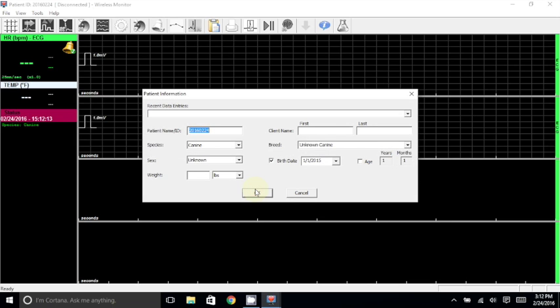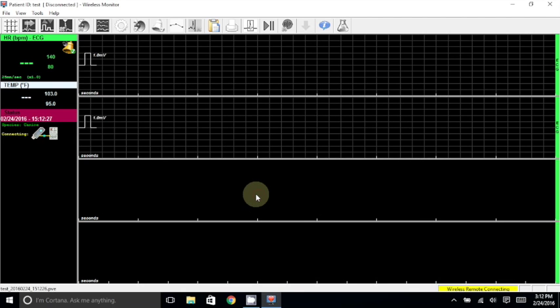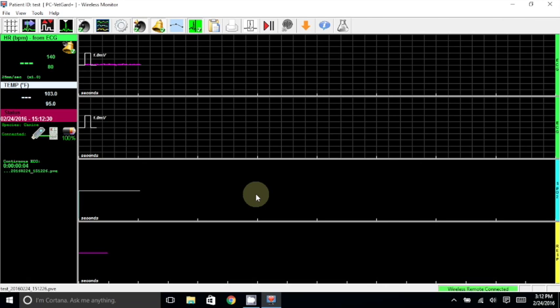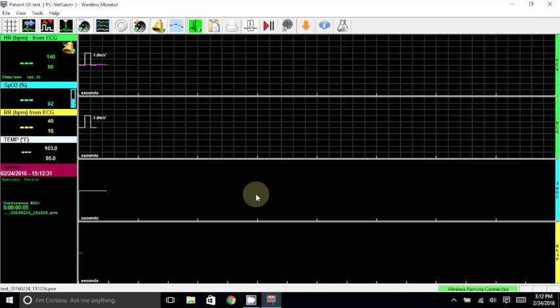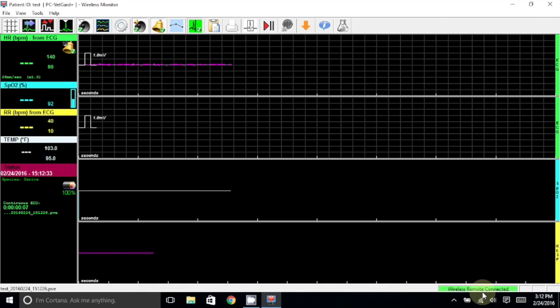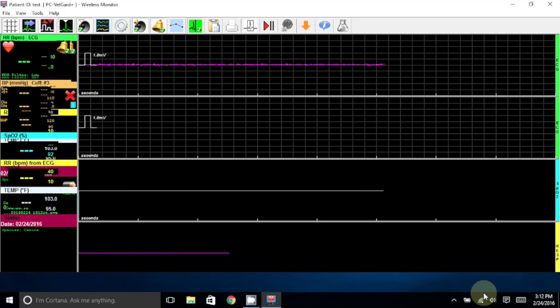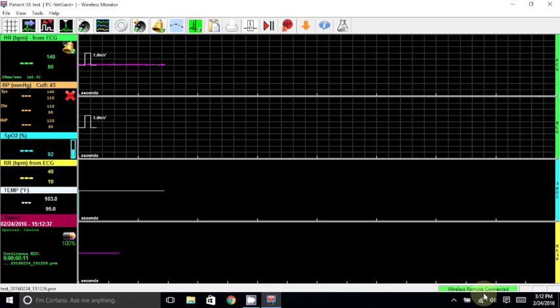In the following screen, you'll see the Patient Information window, and I would advise you to go ahead and enter a patient name in the Patient Name ID field so that you can find this episode later on. I'll just enter Test and click OK. This will begin the connection process. Once it is connected, you should see Wireless Remote Connected and the green down at the bottom right to let you know that you are now wirelessly connected.